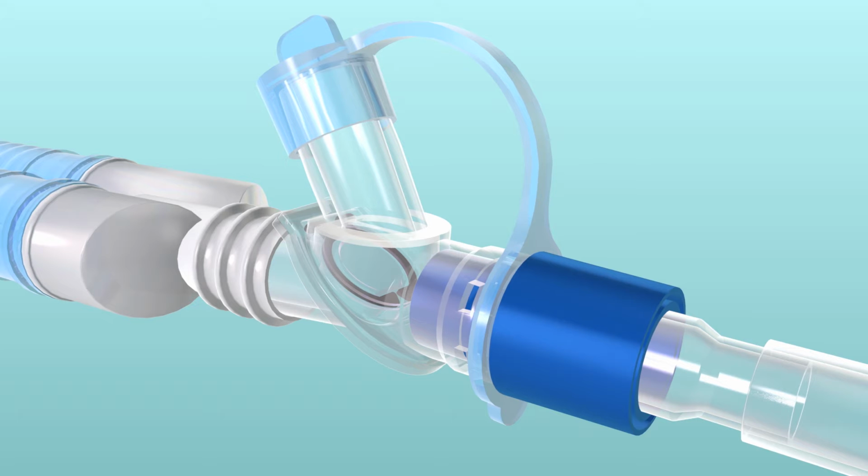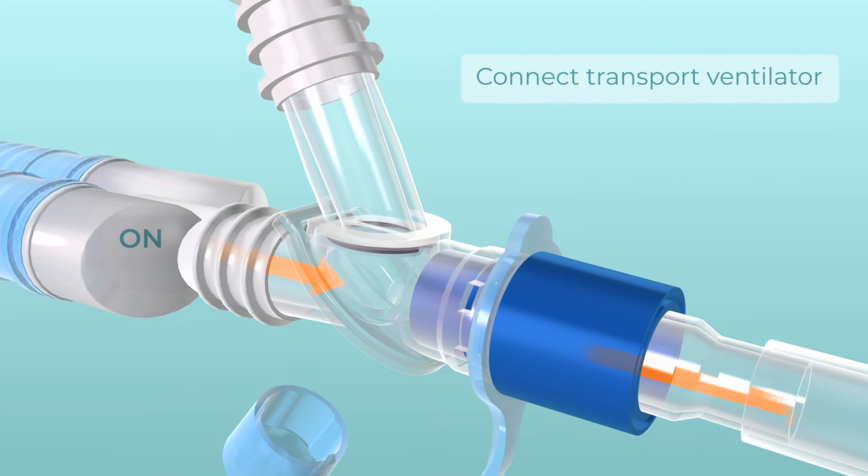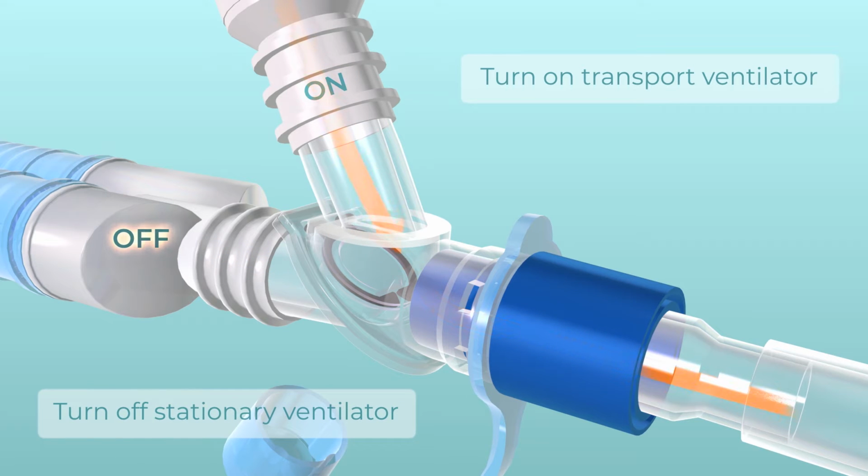When the stationary ventilator is connected, the flow of gas travels from the ventilator port to the patient port, with the bypass port sealed off by the swing valve. To transport the patient, simply uncap the bypass port and connect the transport ventilator. Turn on the transport ventilator and turn off the stationary ventilator.